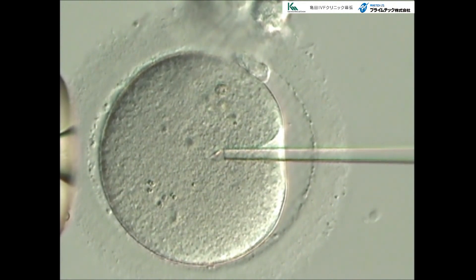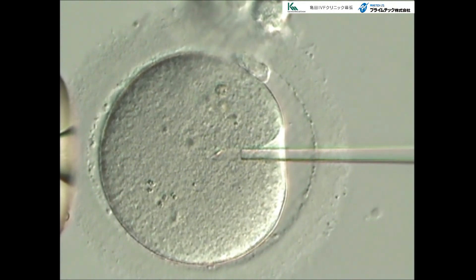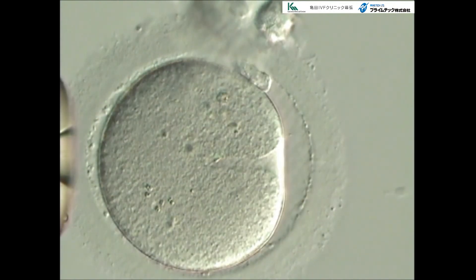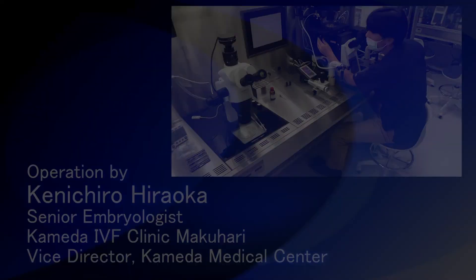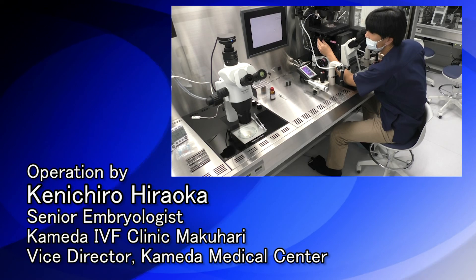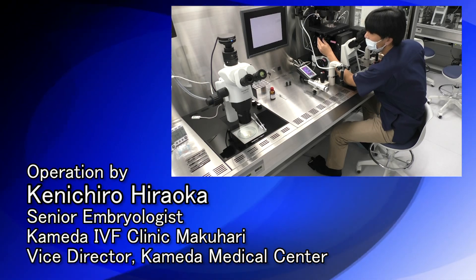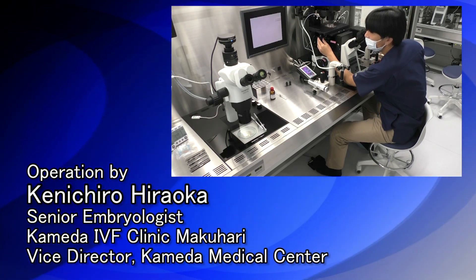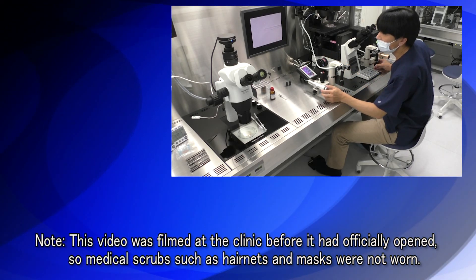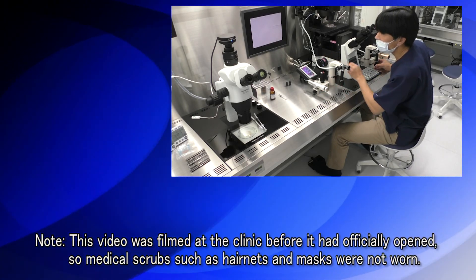This has been an explanation about the standard methods of piezo-ICSI. Various studies are still in progress regarding intracytoplasmic sperm injection and oocytes with a low-stretching-ability membrane. While aiming at a higher rate of fertility by incorporating future research results, this is to standardize the use of current piezo-ICSI.